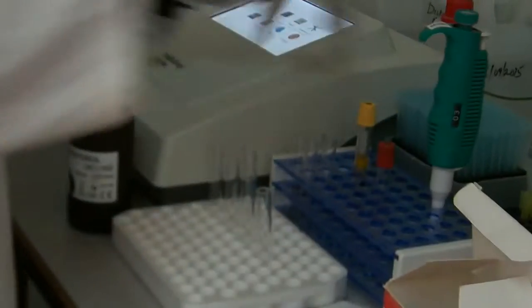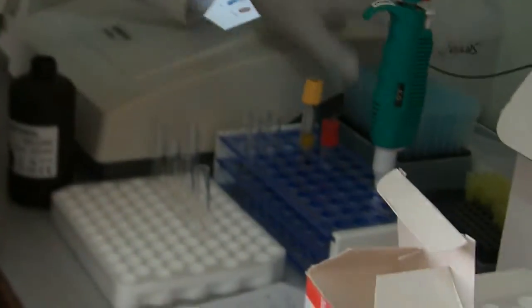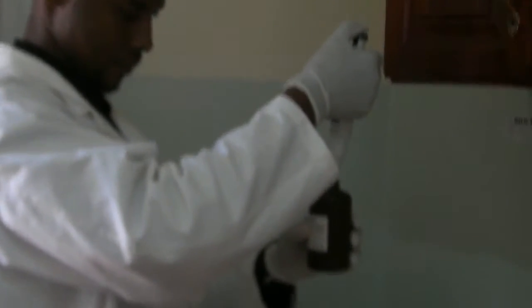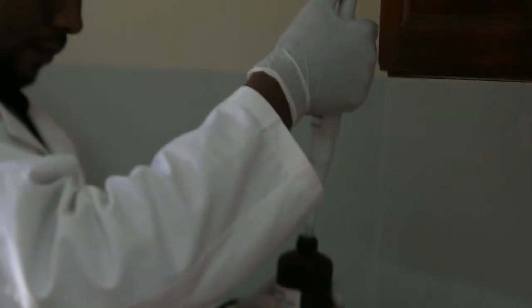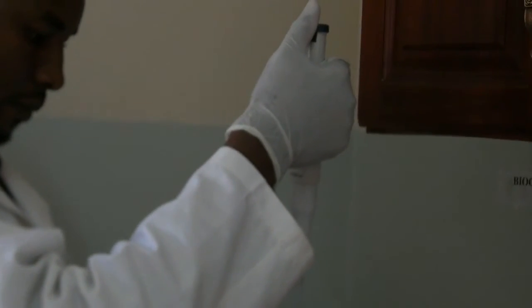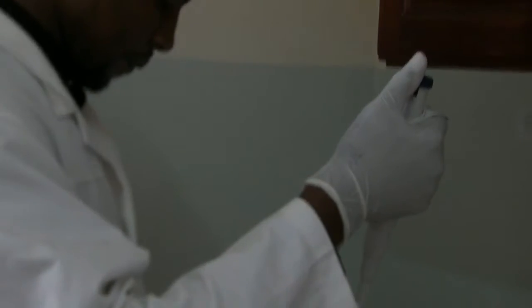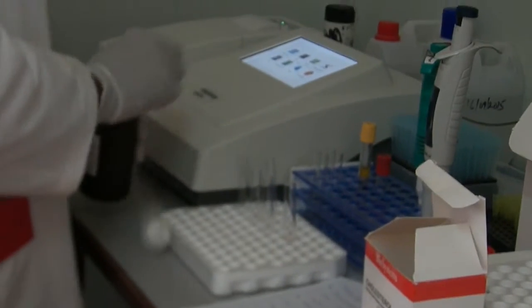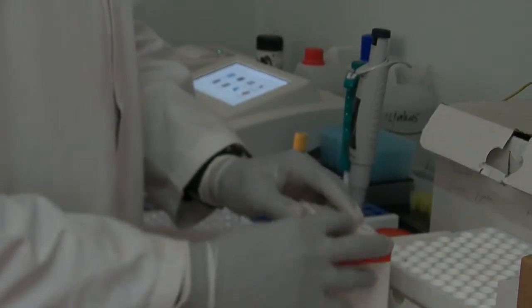So first, you get out your reagents, measure 1000 microliters. So because we have to maintain a cold chain of this item, we take it back to the fridge.